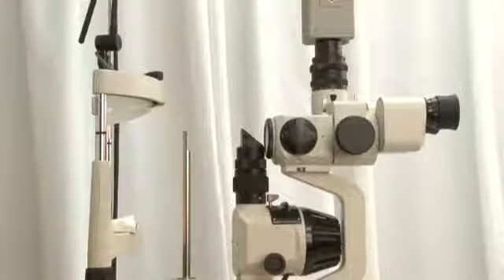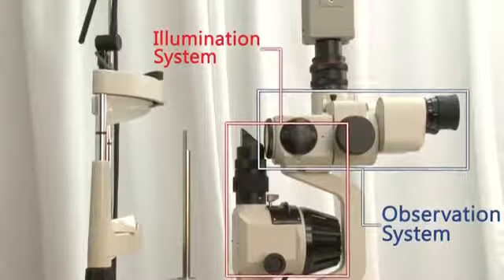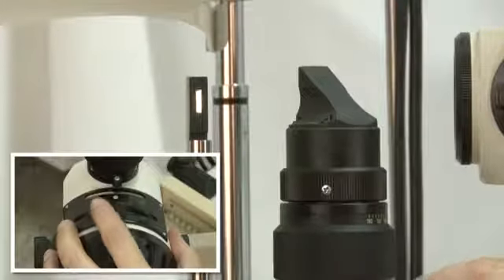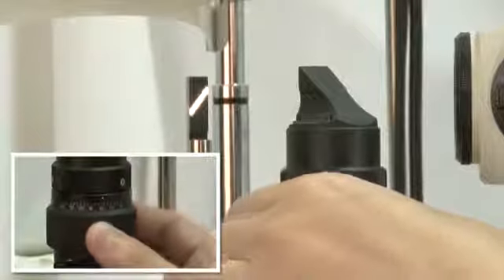All slit lamps in the market have a similar design. They have two basic components, an observation system and an illuminating system. The illumination system provides a precise and adjustable source of light. These are controls for varying the width of the beam, or height of the beam, or even change the orientation of the beam, for example, from vertical to horizontal.